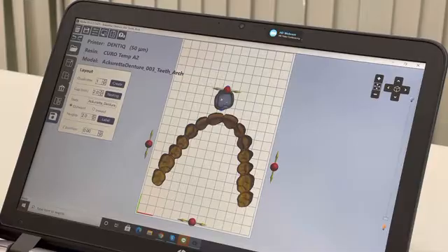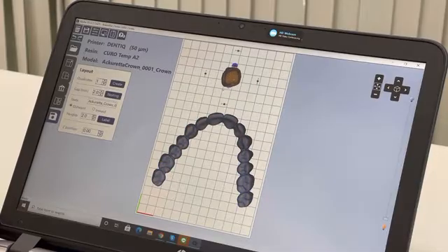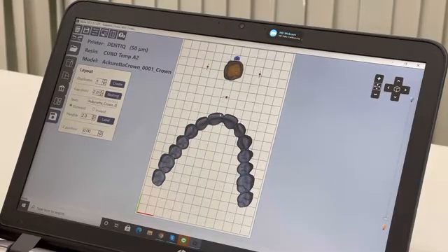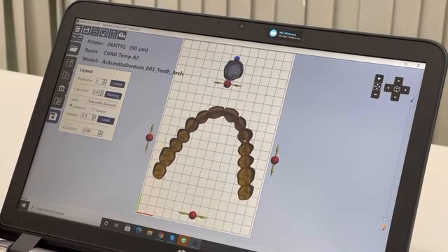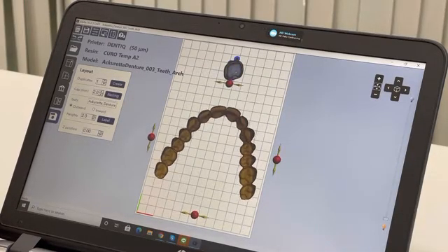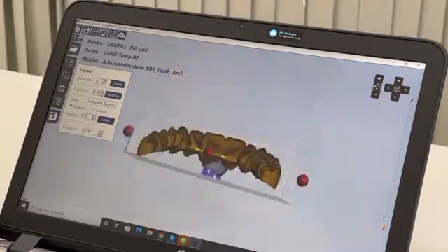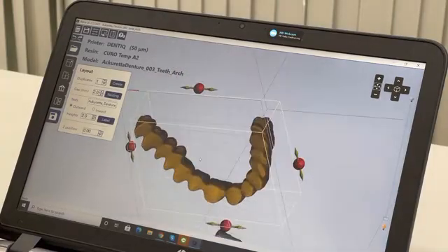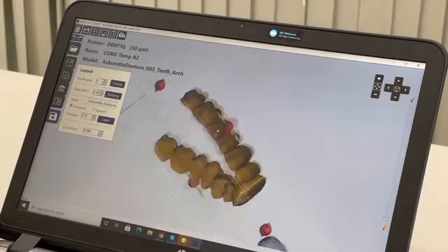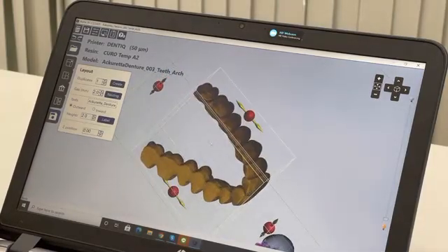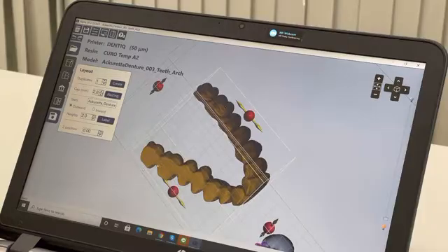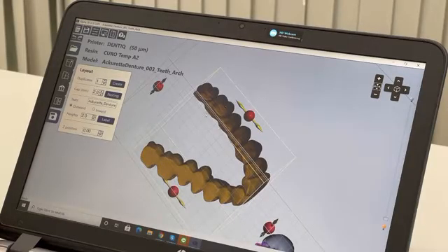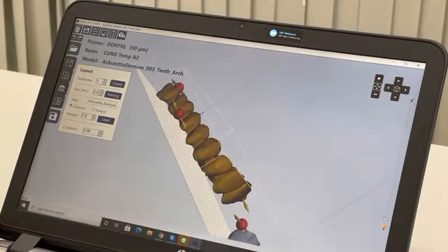Then, what is the most important part? Again, this is the most important part because it will go into the mouth, so I will change the orientation.